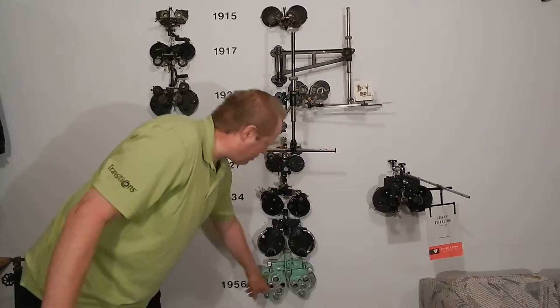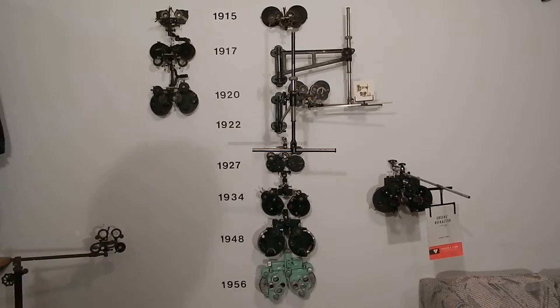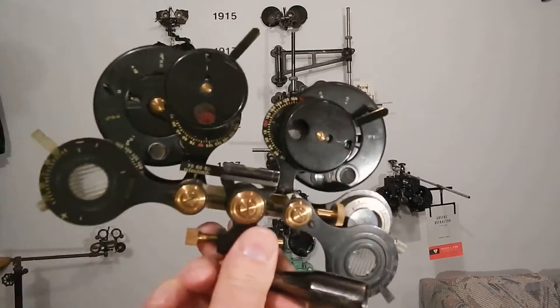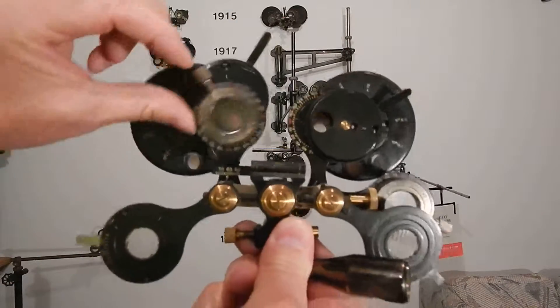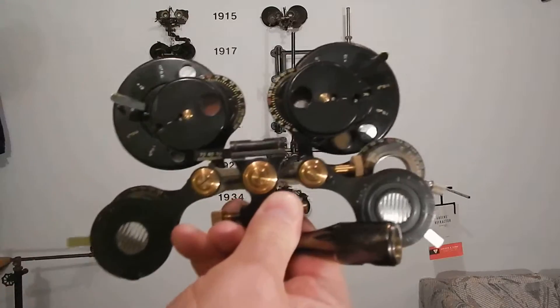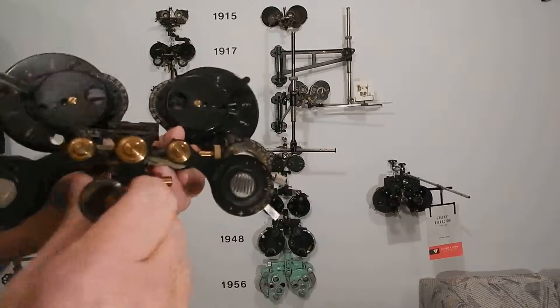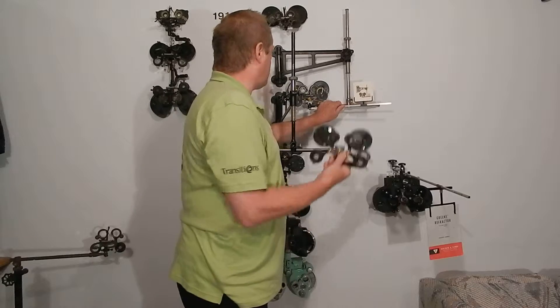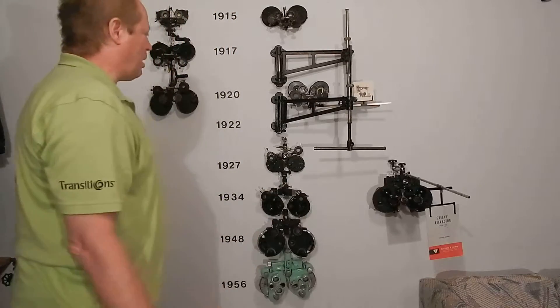The cylinder part in the middle goes up to minus six — it has the same pattern, only eight lenses total, four in front and four in the back, up to minus six. This one's in mint condition, by the way — I don't think anybody ever used it. It's got a Maddox rod and a Risley prism. They sold so many of these that the word 'phoropter' became generic for the entire instrument type — all refractors are called phoropters because of this one.